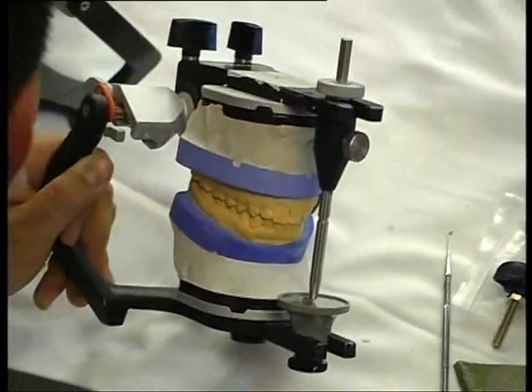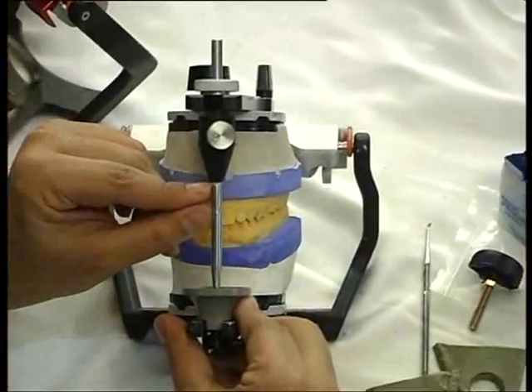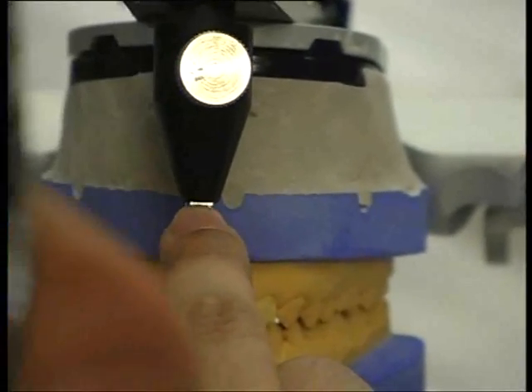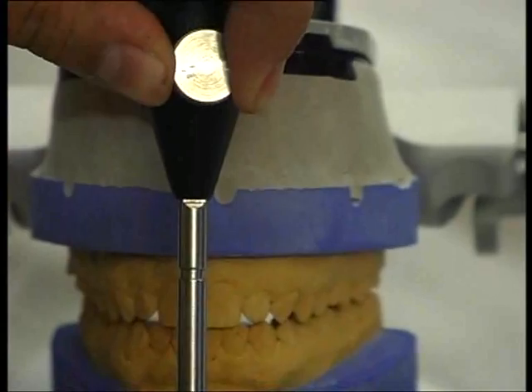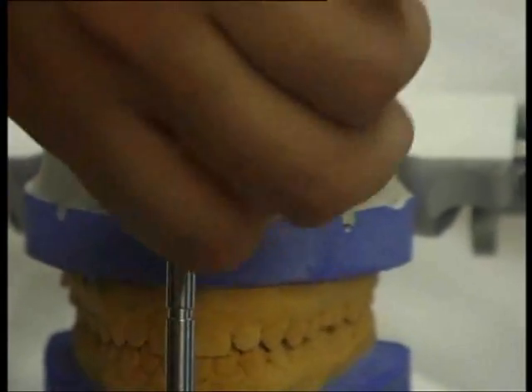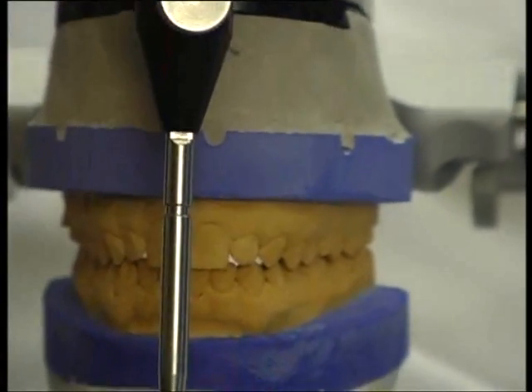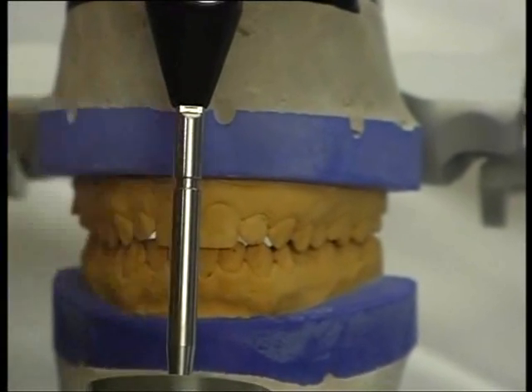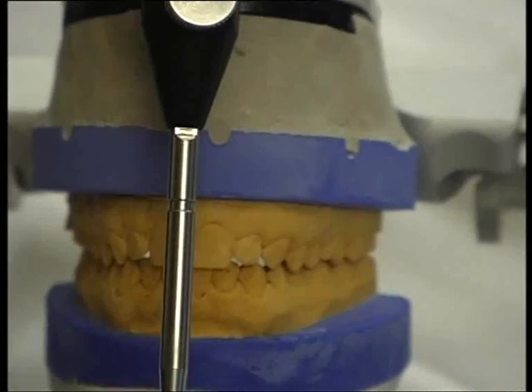How do you measure that? On the articulator there are lines on the vertical pin — look here. I can see one mark here but not the other mark. Let's take that mark as zero. I will now open this and drop it further. Now I can see that second mark also. I can measure from this mark to this mark — it's about a millimeter. Each mark is a millimeter, so I can add that much more.